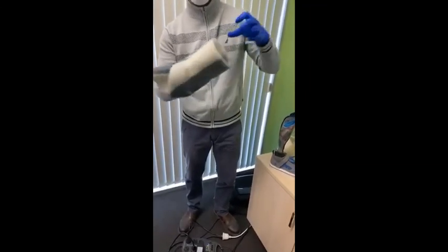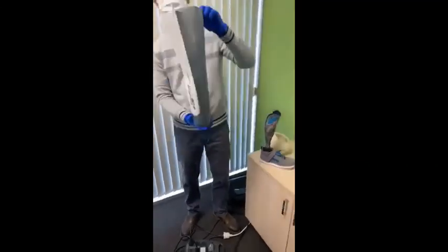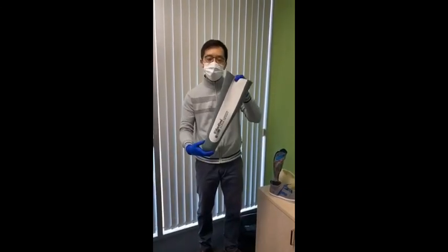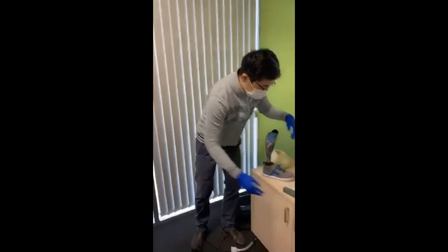And in this sample, it's a cushion liner. So this is just to give you an idea of how the liner looks on the outside and on the inside, or how it could look. So that's a design liner.